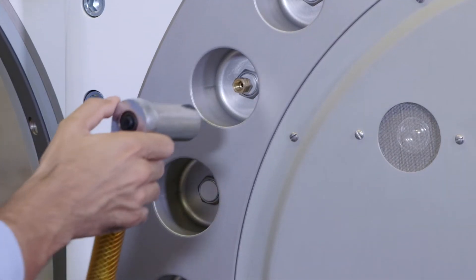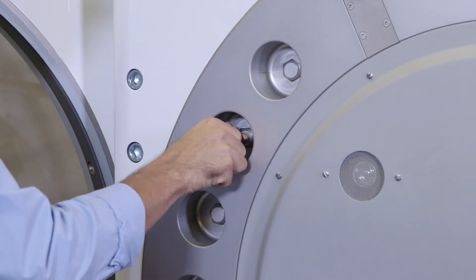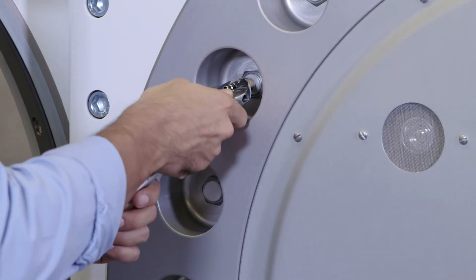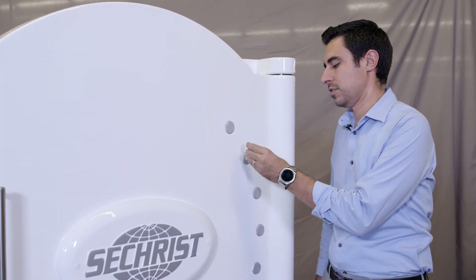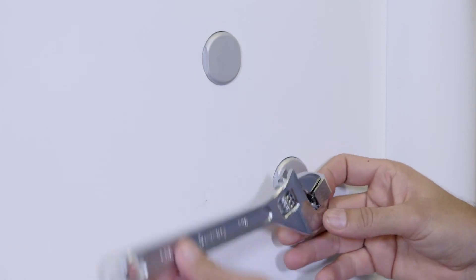Use a 1 and 1/16 inch socket to fasten. Install your bubble barb fitting into the 1/8 NPT fitting from your IV pass-through and secure in place using a crescent wrench. Install the 90 degree elbow fitting to the 1/8 NPT nipple on your IV pass-through. Fasten using the crescent wrench and align the fitting vertically with the chamber.